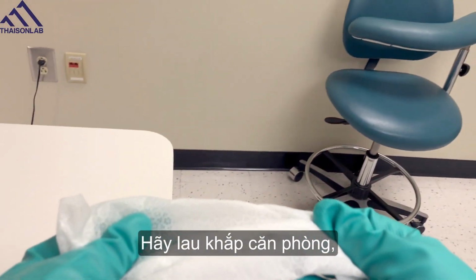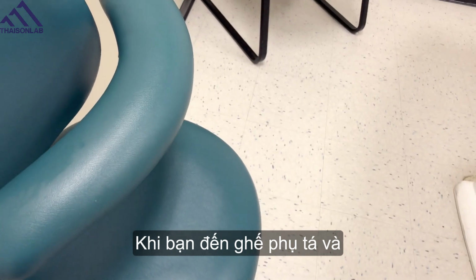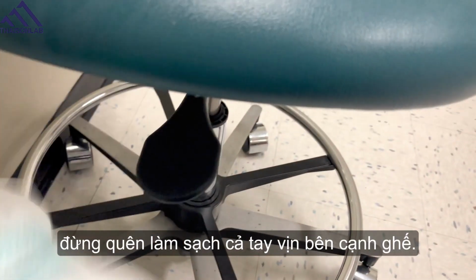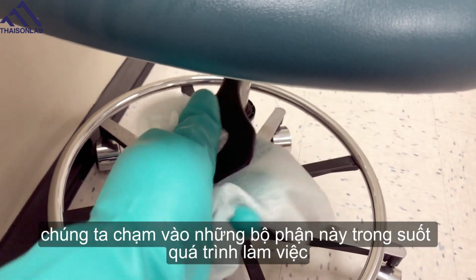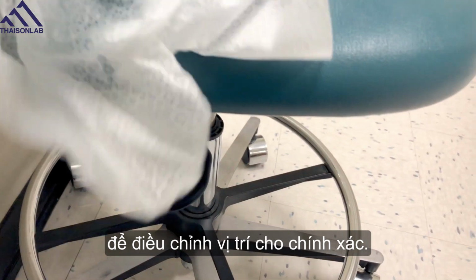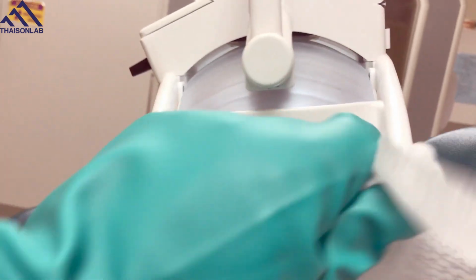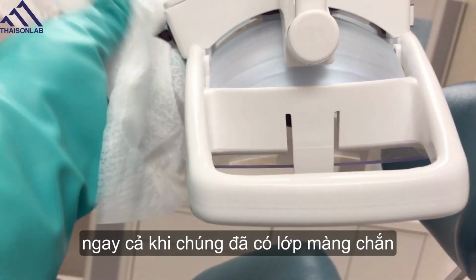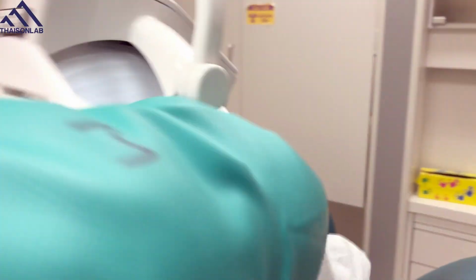Go around the entire room, cleaning all surfaces with this towelette. When you get to the assistant stool and the operator stool, don't forget your paddles on the side. A lot of times we're touching these throughout a procedure to fine-tune our positioning. Operatory lights. Disinfect the handles, the switches. Even if they had a barrier, if this is end of the day, we disinfect everything.